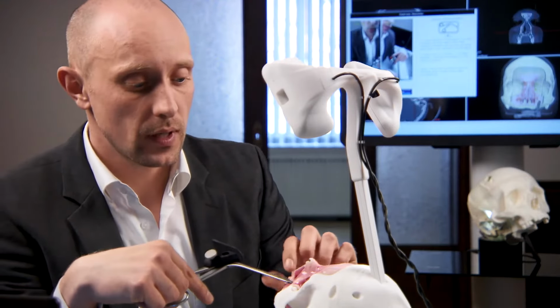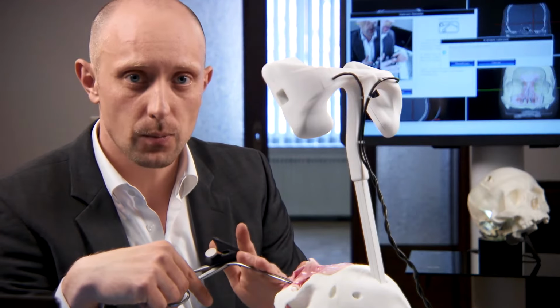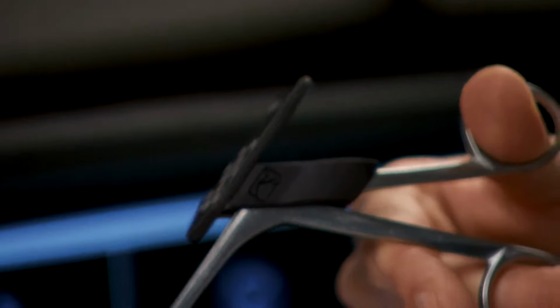Next, if you want to use your own instrument, you have to calibrate this instrument. Therefore, click in the Setup menu on the Tool Calibration button. Then choose any point you like, but make sure that during the calibration process the tip of the instrument is not moving. Please select 5 different angles.